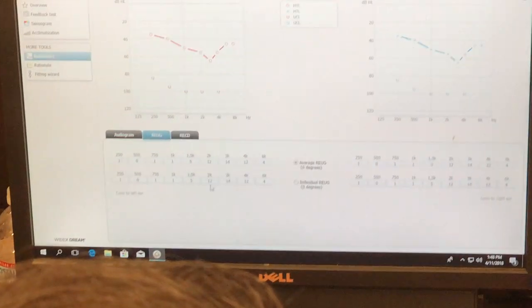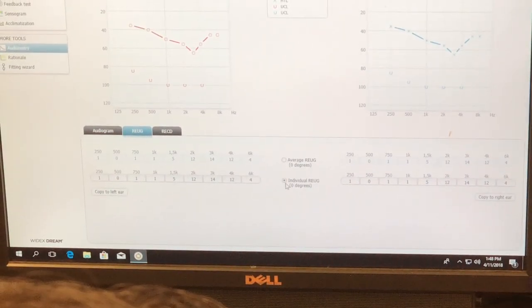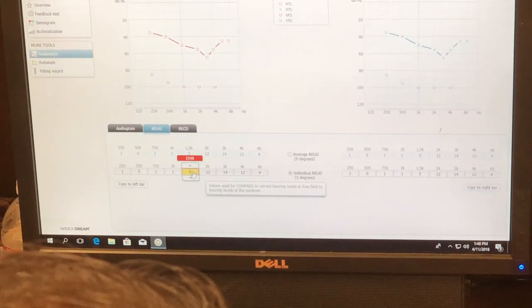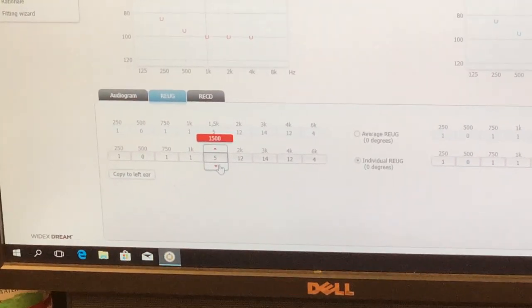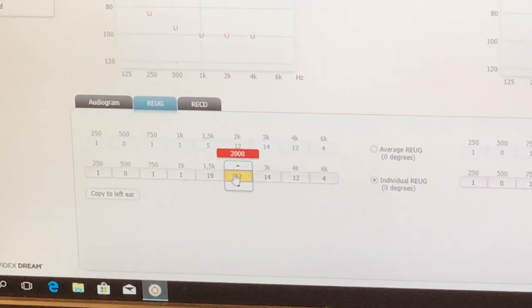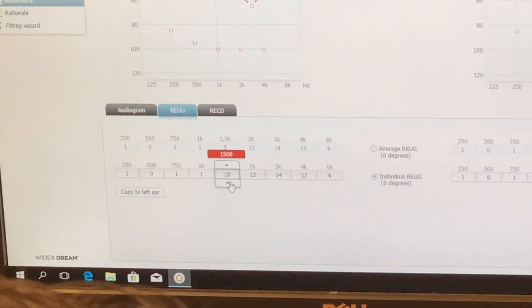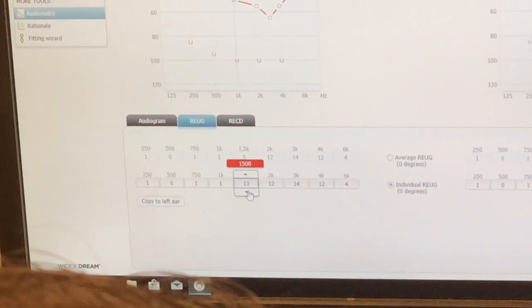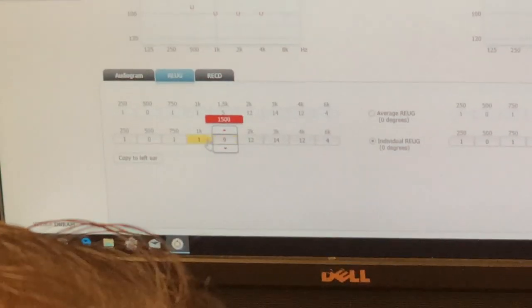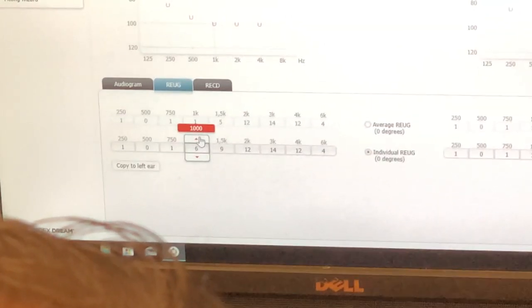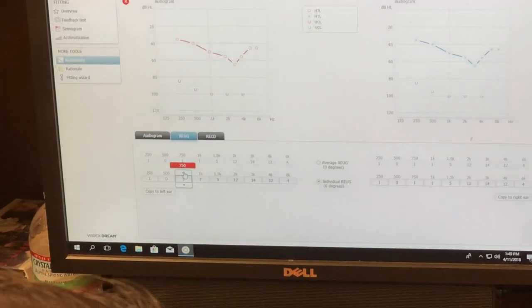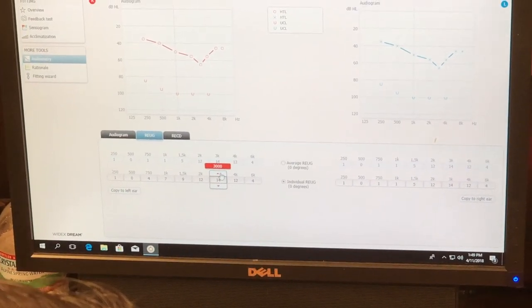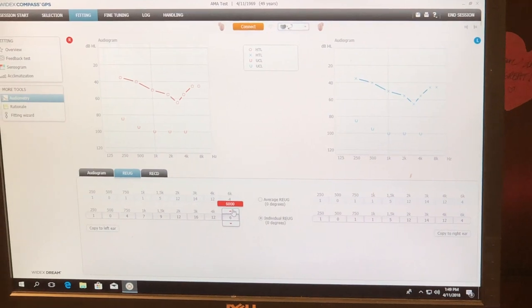So if I go in here and change this, and let's say that I'm going to go in and say individual numbers. So they're down here now. I'm going to have them the same, just for my purposes. This is typically somewhere around nine, this is typically somewhere around six or seven. Let's make it seven because it's a male. This is typically about two or three, so it kind of looks like this. You usually have about 16 or 18 dB of gain here, that 12 is fine, and this is usually about eight.